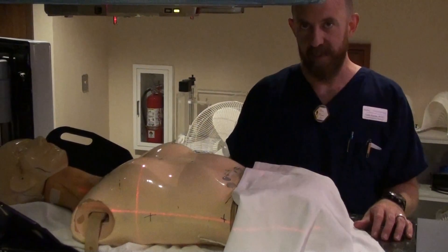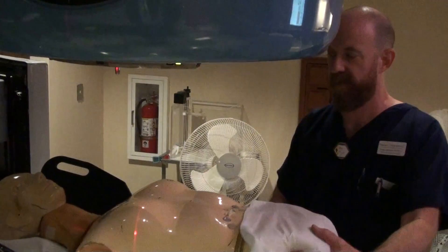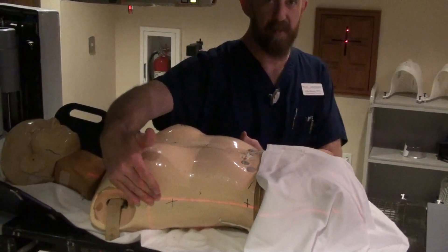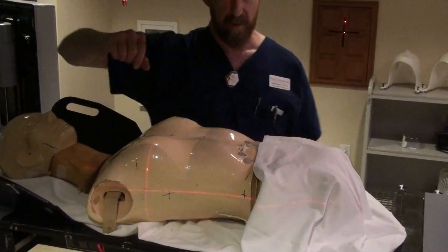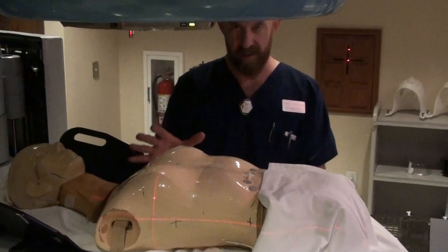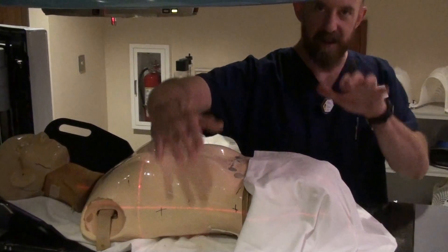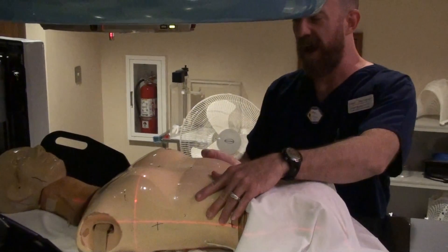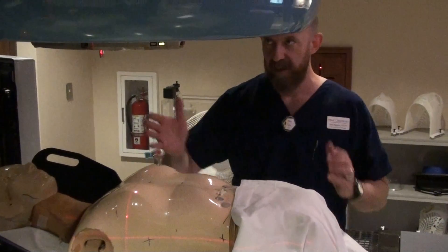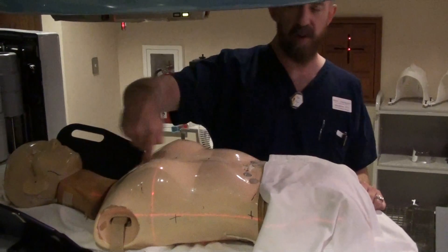What you might end up seeing is what I like to call a three-point in-line setup. If the patient lays down and their arms are at their sides, it's going to be difficult to give them a three-point setup with the lasers because their shoulder girdle is going to move around. You may see just a mark on each side just to get them level, but even if they're level, you don't know if you have them straight because you don't have them set up at three points. You can use the field light shining onto the patient and get them aligned in three points this direction.